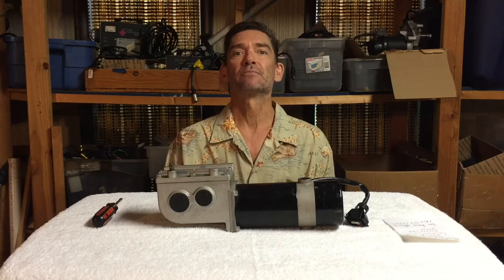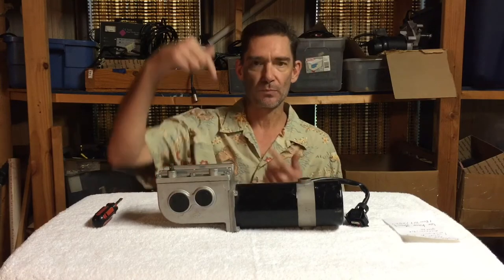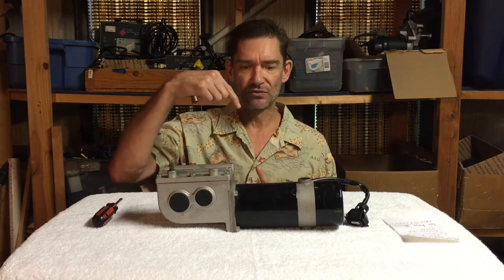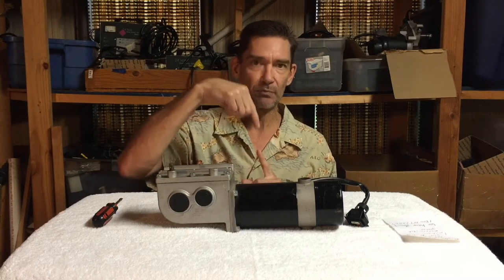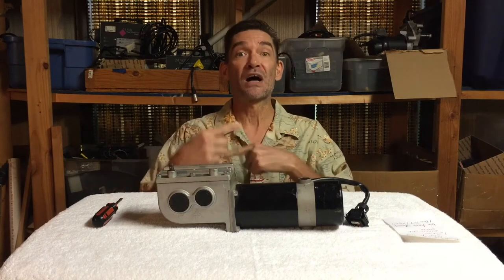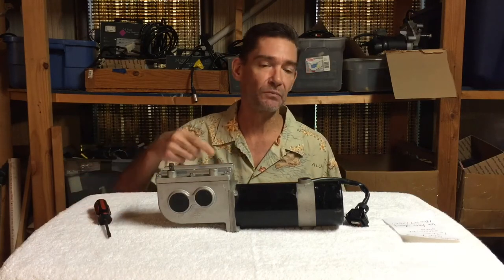Getting to the brush part — my theory is that inside the motor you have a commutator, and that's where the brush makes contact. Sometimes when a wheelchair sits for a long time, having those brushes in contact with that commutator in the same place for a long time creates a corroded spot. Maybe 1 out of 20 times, when you start it up it hits that spot. You could probably clean that out right through the hole.